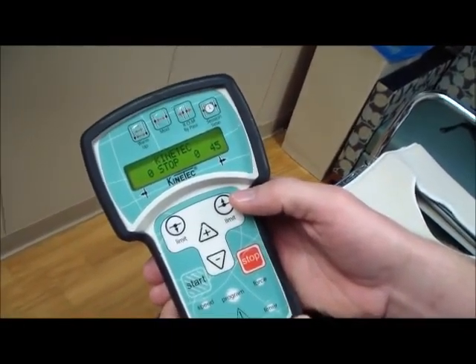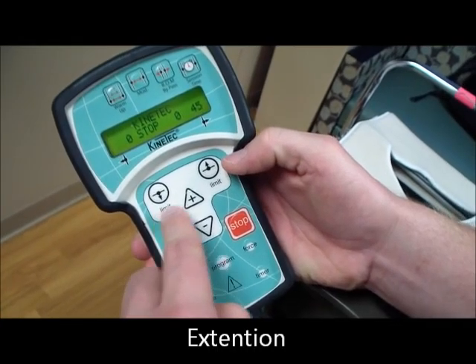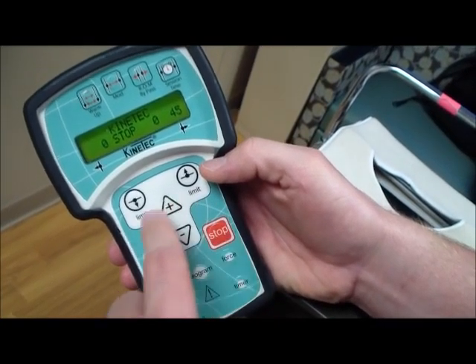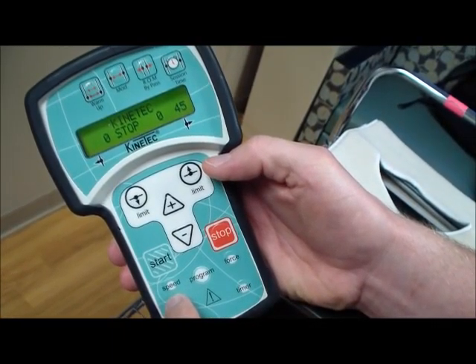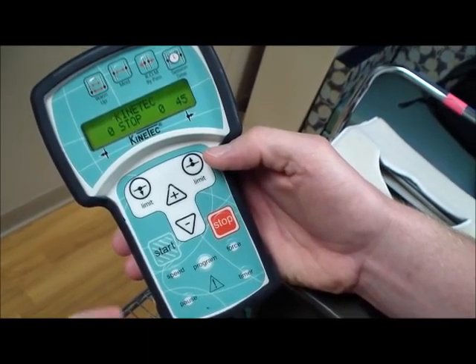So typically here, this adjusts how much extension you have. This adjusts how much flexion you have. So straightening of your knee, bending of your knee. Our up and down arrows to adjust. Our start and stop buttons. Our speed as well to adjust the speed. All these other buttons you do not need to worry about.